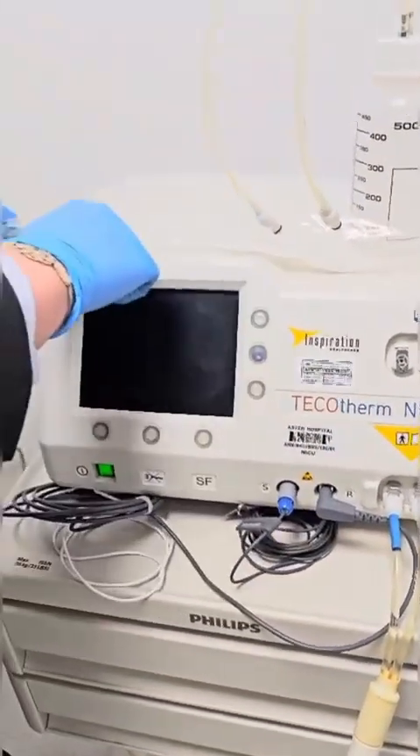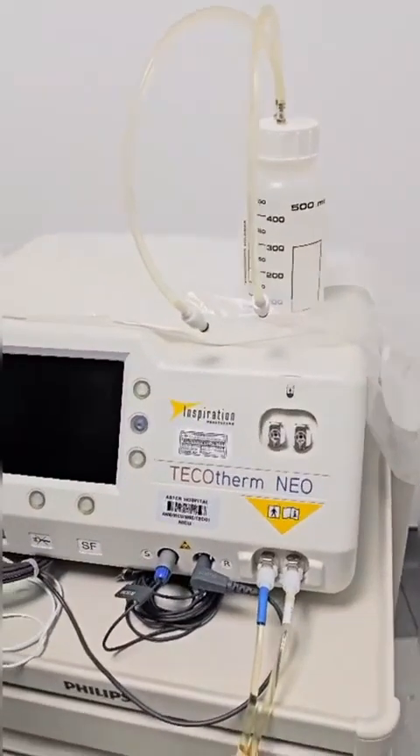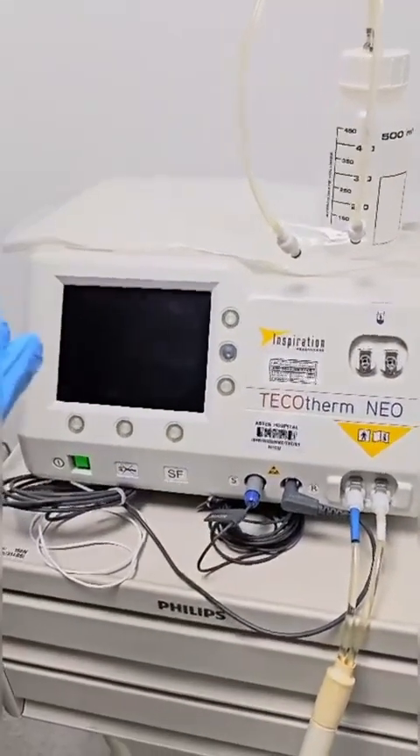And we need to assure that a mattress is available and fill it up with 500 ml of distilled or sterile water. When you grab everything, you can proceed further.